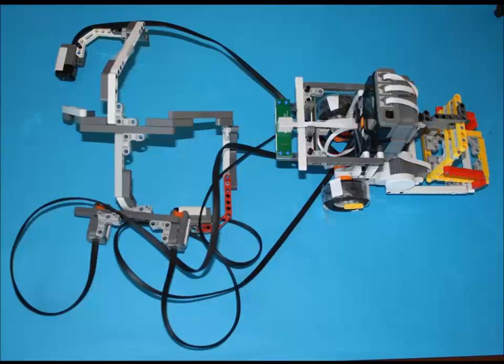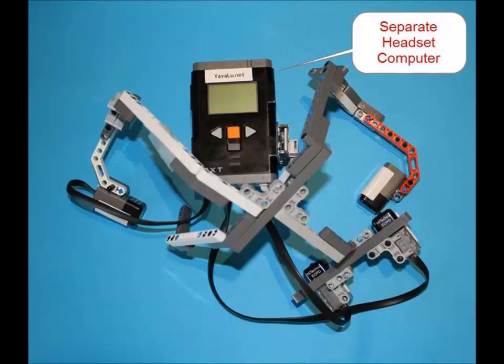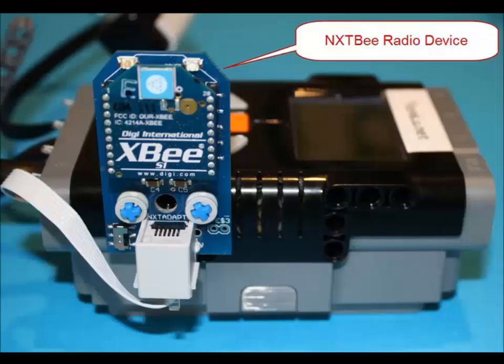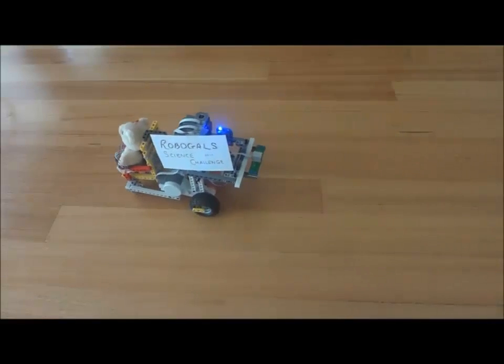The mass of cables linking the robot to the wheelchair would probably create a lot of difficulties if the quadriplegic needed to go to the toilet or get medical treatment. So I made the headset and chair separate, and linked them by radio instead. This wheelchair robot is radio-controlled by the headset robot.